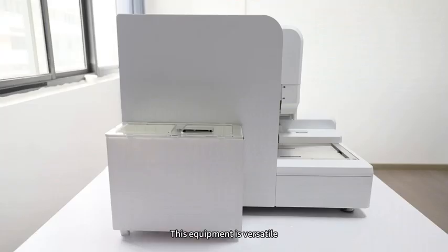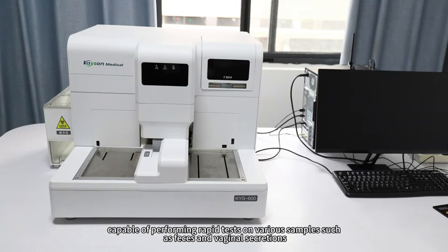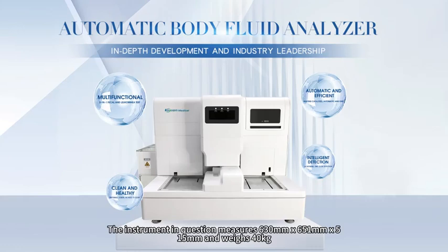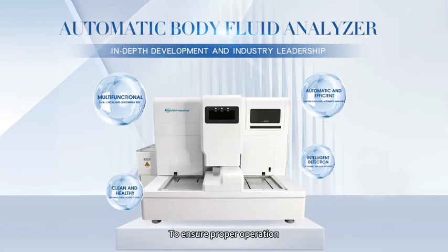This equipment is versatile, capable of performing rapid tests on various samples such as feces and vaginal secretions. The instrument measures 630mm × 651mm × 515mm and weighs 40kg. To ensure proper operation, please place this device on a suitable workbench.